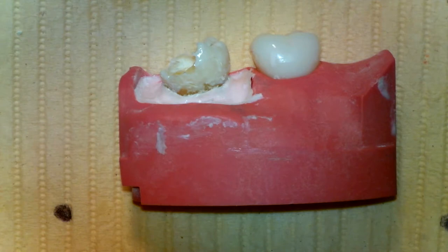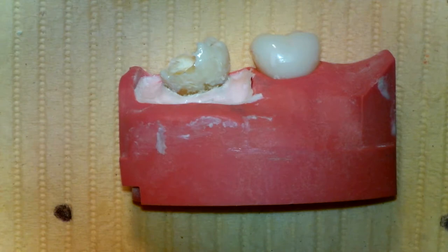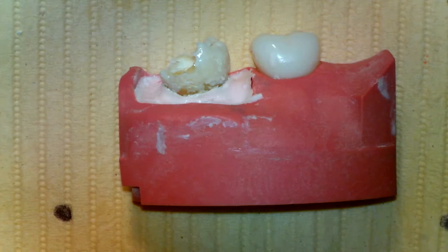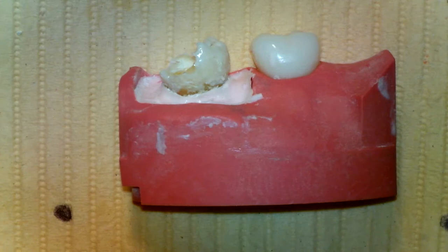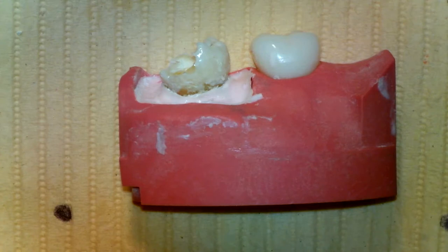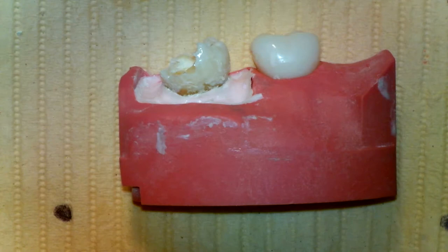The post does not strengthen the tooth. Its function is to retain the post and core material, not to strengthen the tooth.